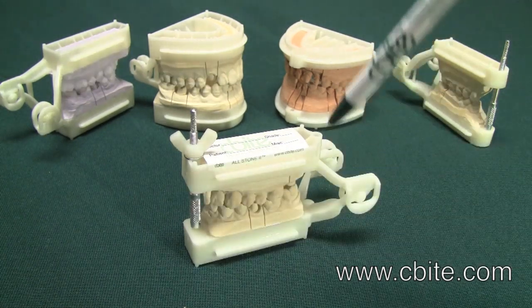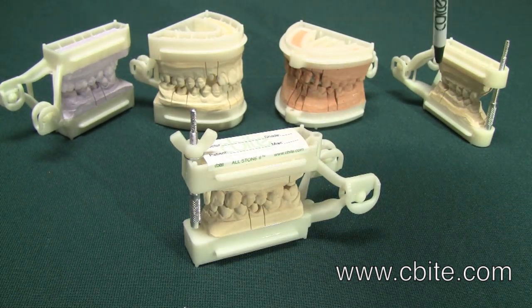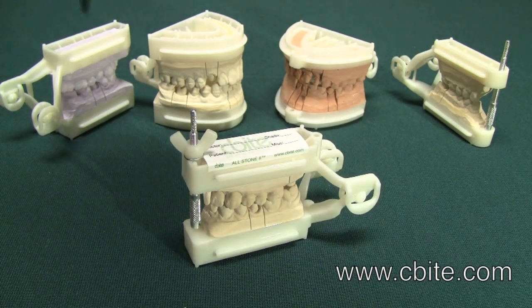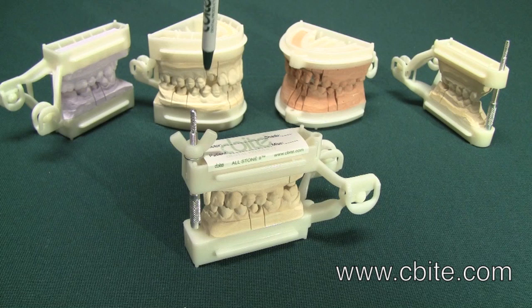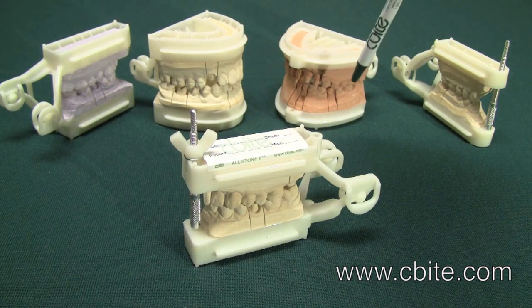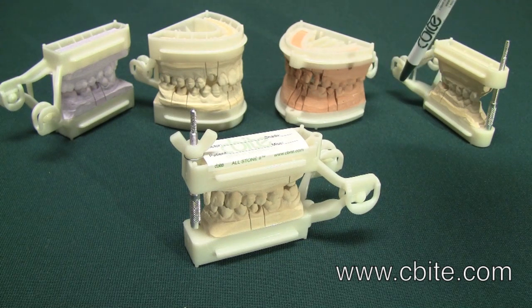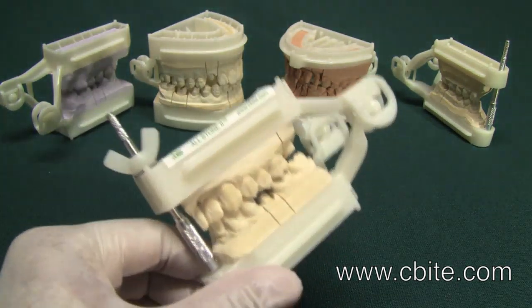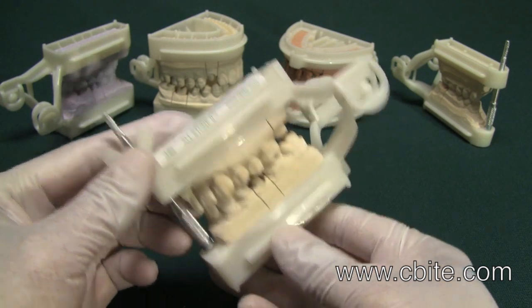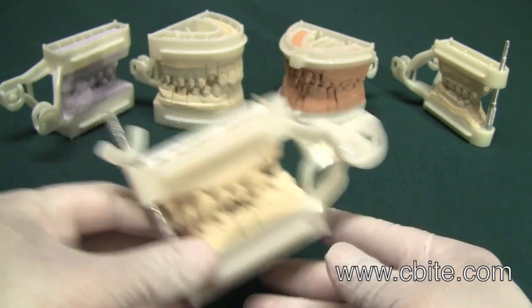The Allstone Neo combines the best designs of the Allstone 1 and the Allstone 2. The Allstone 1 was designed for maximum stability and accuracy. The Allstone 2 was designed for maximum ease of use and to be user friendly. The Allstone Neo has incorporated basically all of these features found in the Allstone 1 and the Allstone 2.